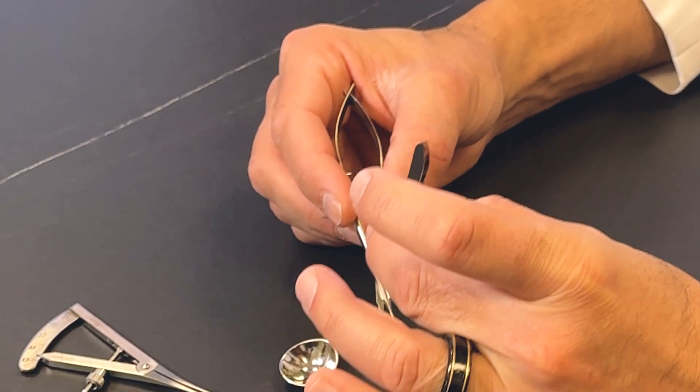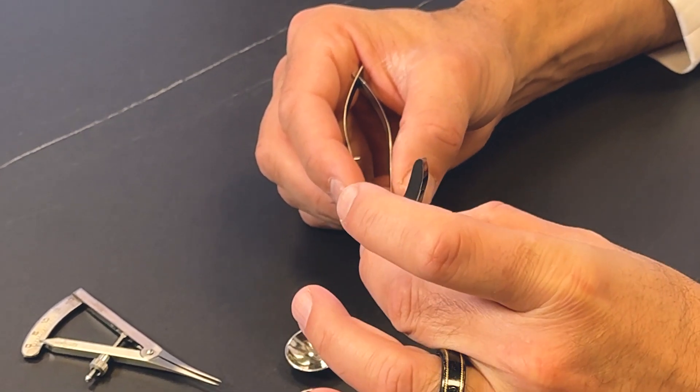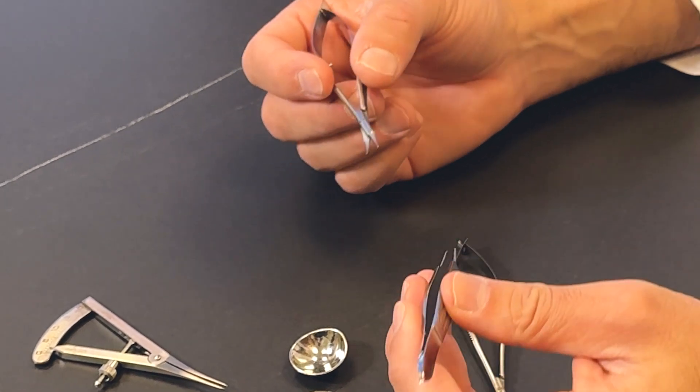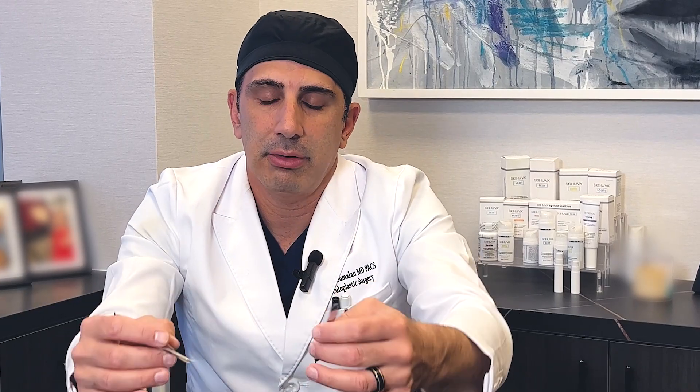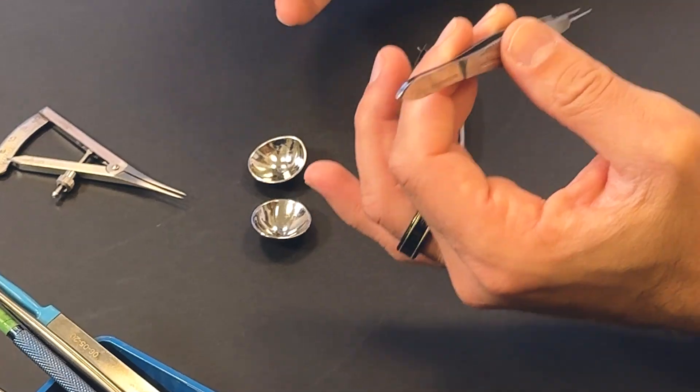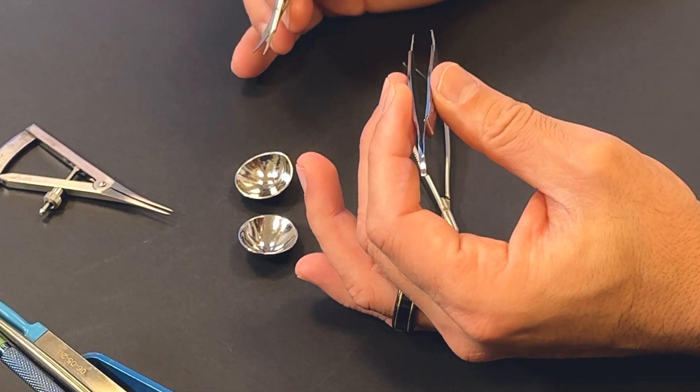If I need to make slight or subtle adjustments when I'm removing skin, for instance, I use these 0.5 pickups because I can really pick up very delicate amounts of tissue, small amounts of tissue, and do my work. As you can see, my hands have to be so steady when I'm doing these surgeries. They're not up in the air. Your hands are not shaking. You need to be as still as possible as a surgeon.